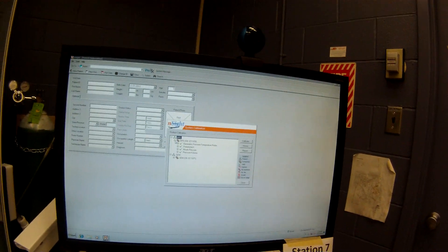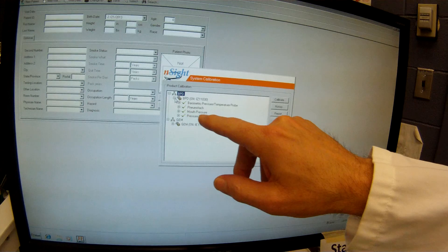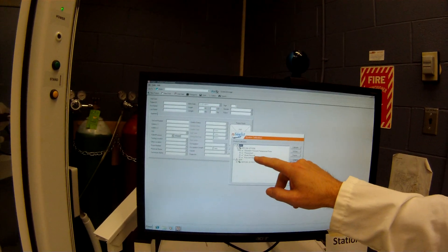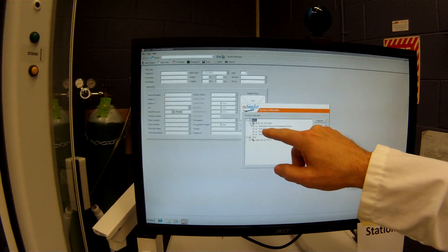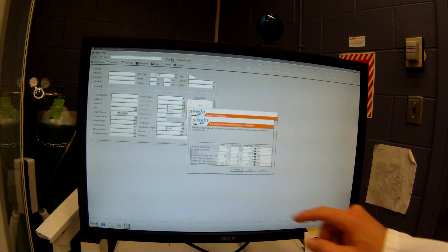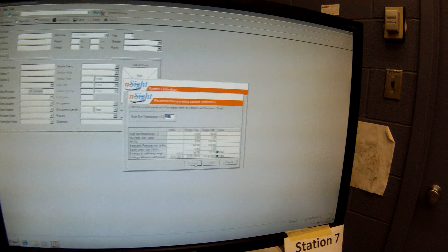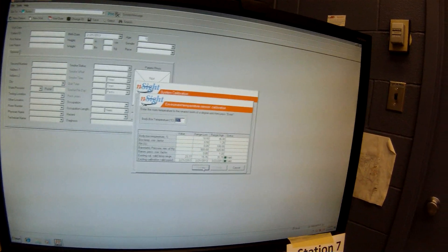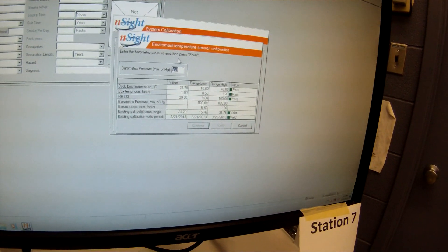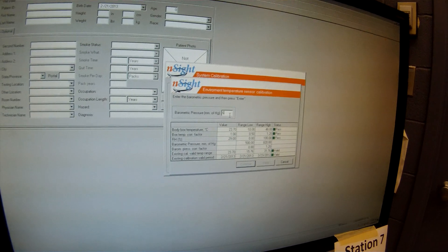Calibration procedure is basically the same. Now, you can see it's got mouth pressure and pressure volume calibrations in here, and that's when we're using the body box. But today we're just going to calibrate the pneumotach. So we'll go under here and first of all make sure we've got the proper barometric pressure. Click on calibrate. It is 23.7 degrees — it's very warm in this room right now. The relative humidity is 29%, and we've got a barometric pressure today of 663.